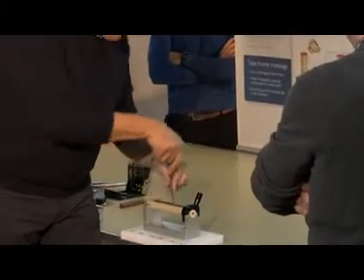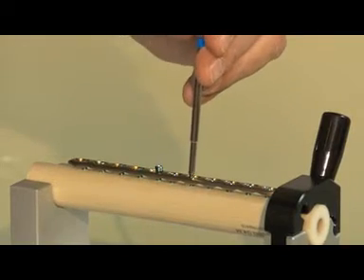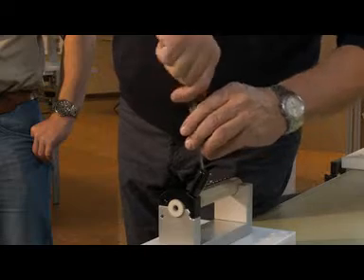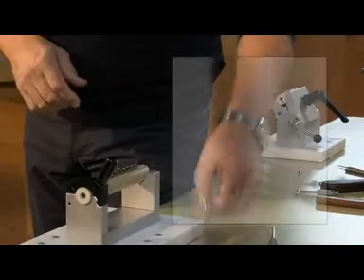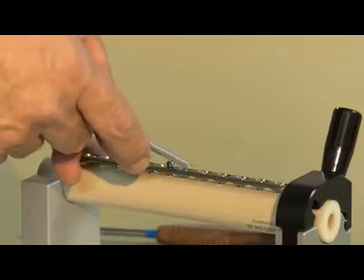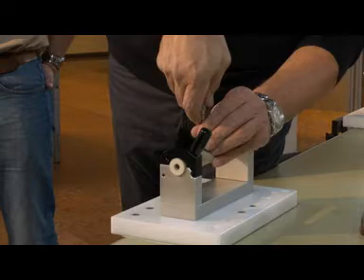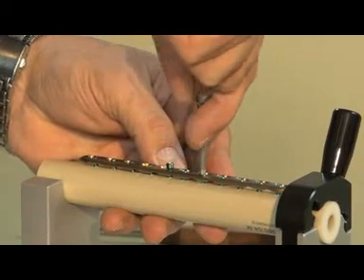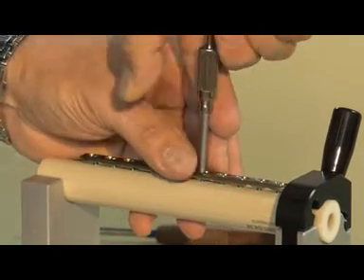Here the screw head is damaged so that I cannot remove it, as you can see. No matter how I use the screwdriver, I cannot extract the screw. I have this instrument which lodges into the screw head so that there is a very tight connection between the screw head and the instrument. I need some pressure in order to apply this and really engage the instrument into the screw.